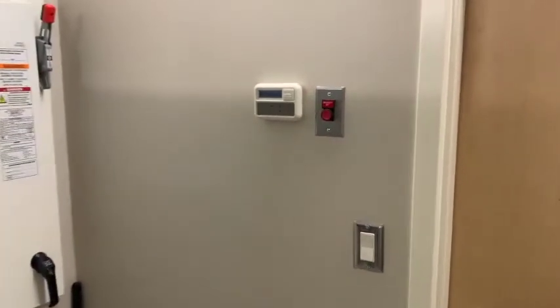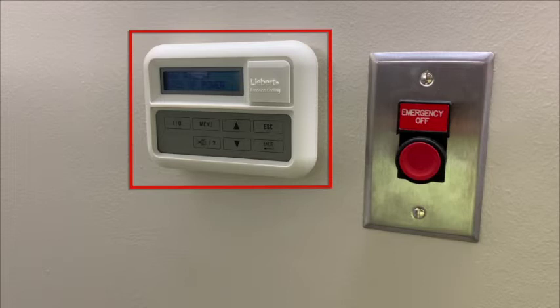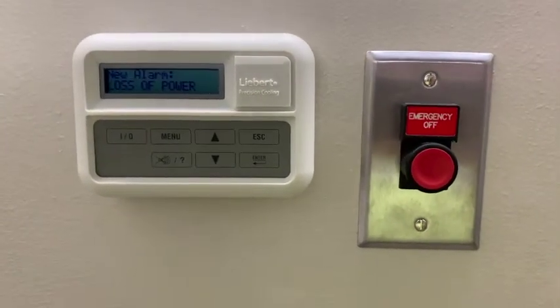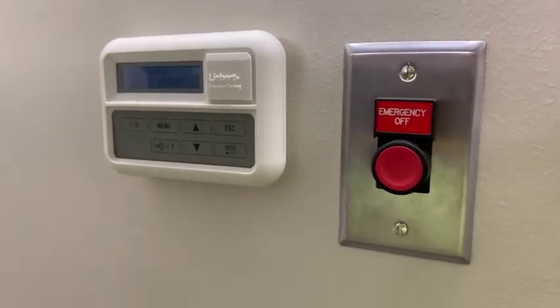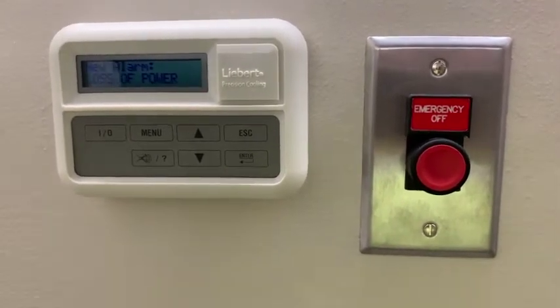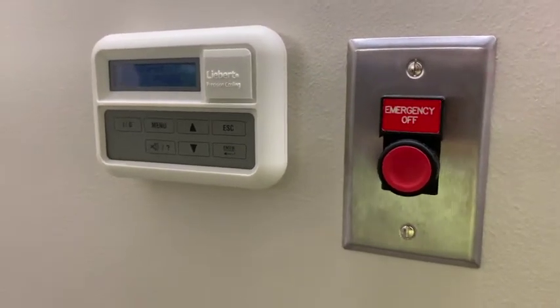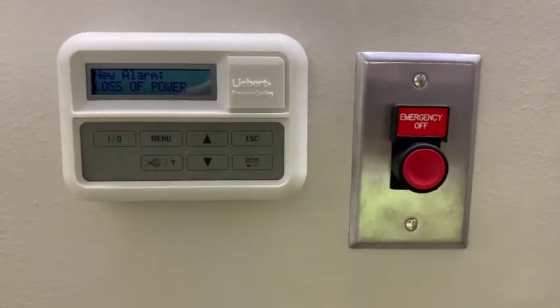To the left of the equipment room door, you will find the white Liebert control unit mounted on the wall. We do not recommend that anyone change or tamper with the settings as they are pre-programmed. The button to the right is the emergency off button. Pressing the e-stop will not quench the magnet, but turns off most of the electrical power in the scanner room and operator area, including the console, computers, patient table, etc. This switch can be used when there is a serious equipment fault or hazard, such as a fire or water in the vicinity of the MR scanner.